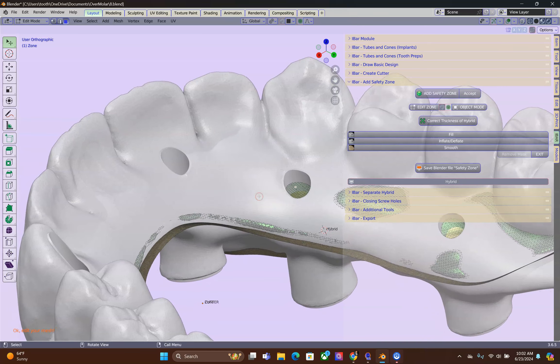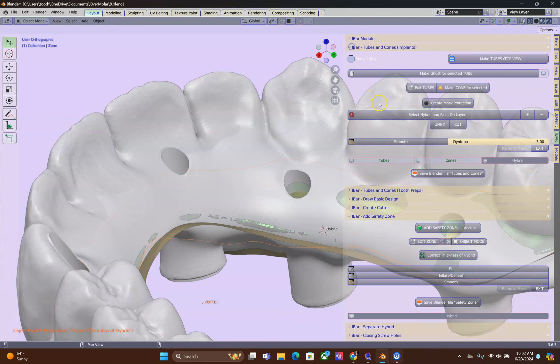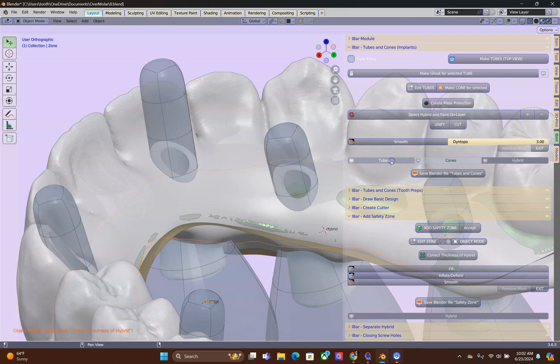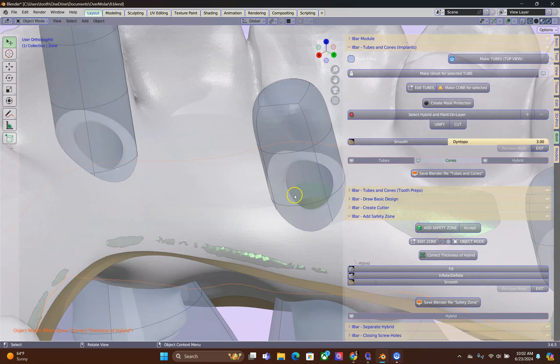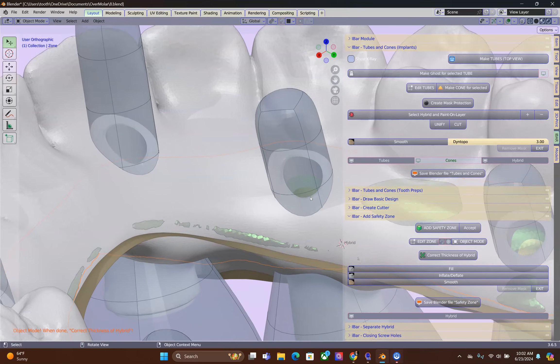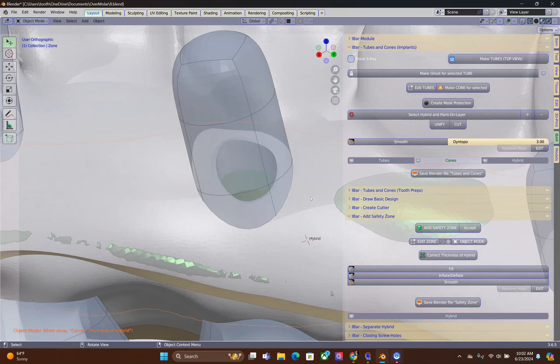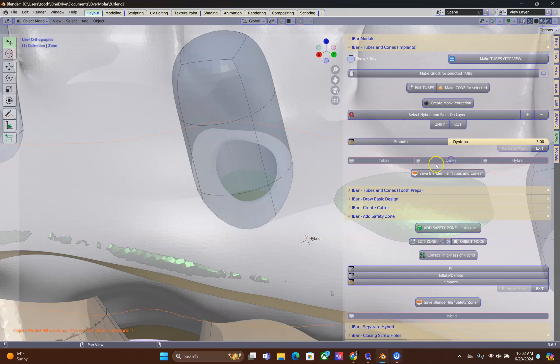The other thing to note is that when we click on the Correct Thickness, the tubes that we made in the beginning are going to cut away the green surface. Ensuring that your geometry, your hole geometries, will not get damaged. This is very important to make these tubes correct in the beginning.